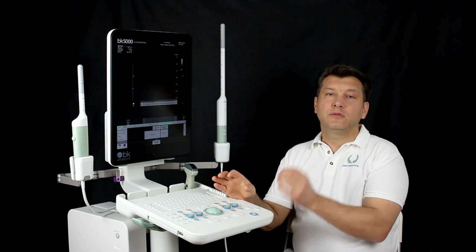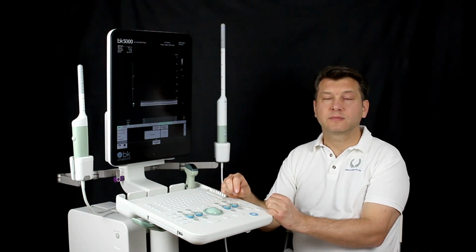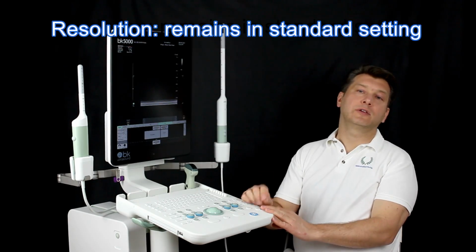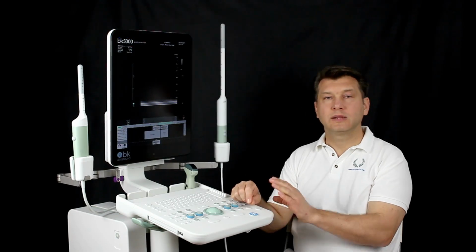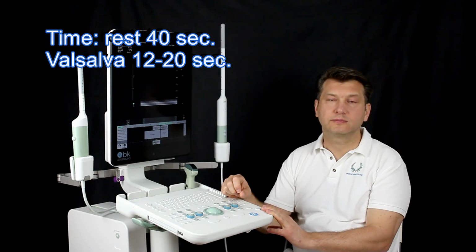Summary: frequency 12-13 MHz. Depth 7 until 8 centimeters. Resolution remains in the standard setting. Distance 0.4 until 0.75 millimeters. Time: rest 40 seconds, Valsalva 12 until 20 seconds.